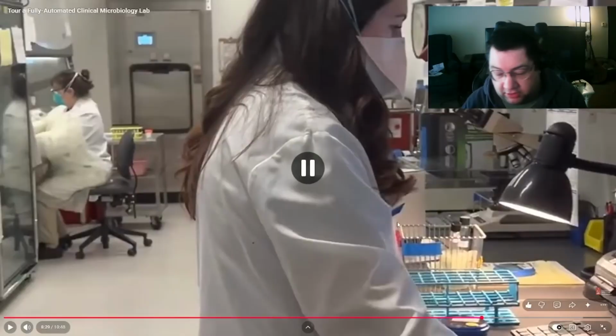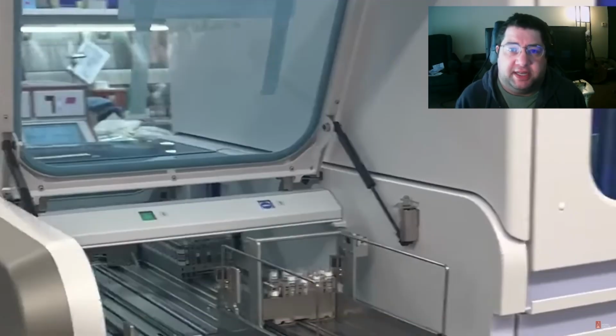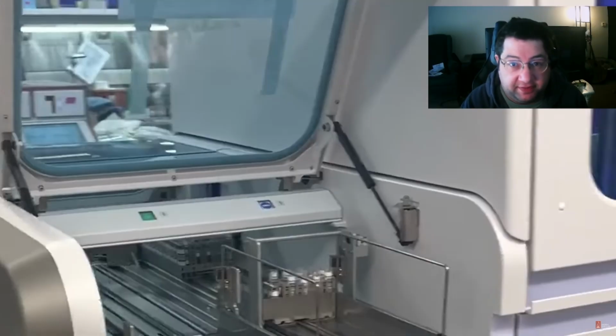In microbiology, okay. So what's the difference between the Cobas COVID testing and testing from the Cepheid, those little cartridges that we saw earlier? Difference is quantitation. So what the Cepheid PCR test will tell you is simply positive or negative. Is it there or is it not there? Boom. What this does is once you have a positive COVID test or whatever positive test for something like HIV or something like that, those will give you positive, negative tests.